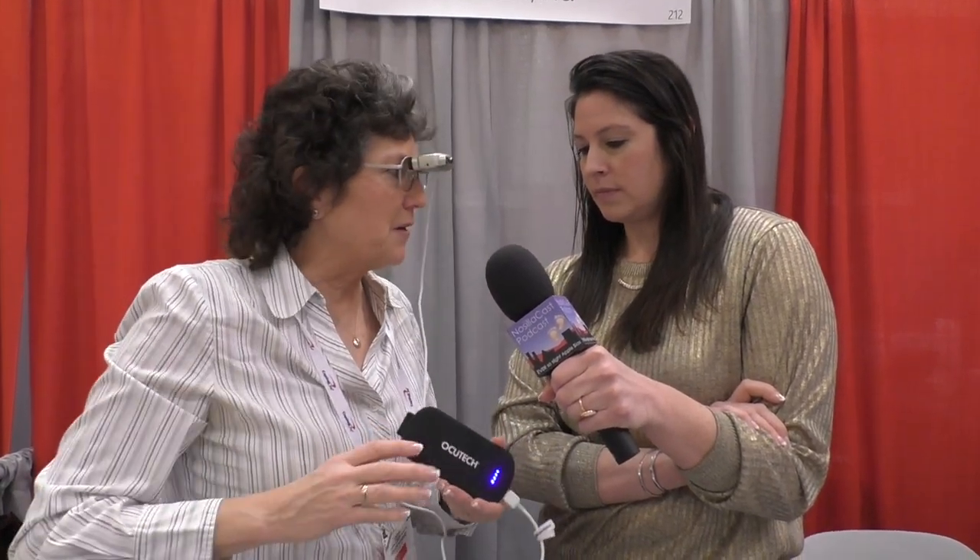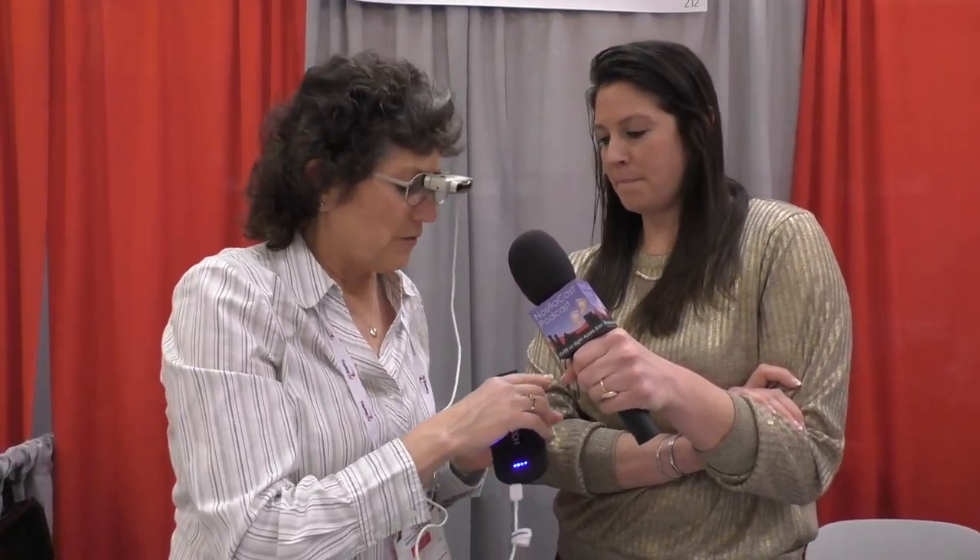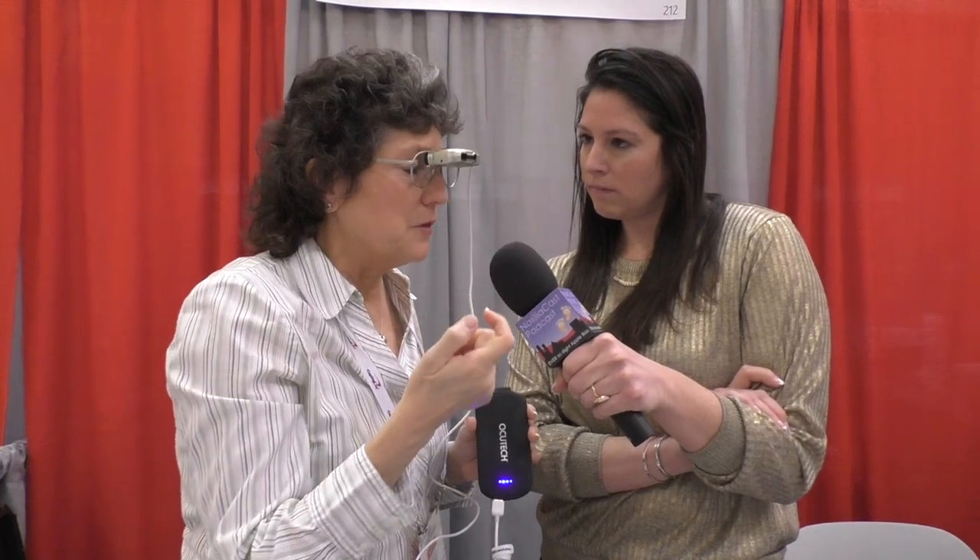Can this be flipped over to look at the left eye? Yes. This little glasses-sized thing looks like it's got a nice little clip — you can clip it on your belt or throw it in your purse. The battery life is eight hours, so you could really wear this all day long. The angle of view is very, very small — I'm looking through a tiny tunnel. That's just optics: it's a series of prisms and mirrors, and the higher the power you go, unfortunately, the less field of view.